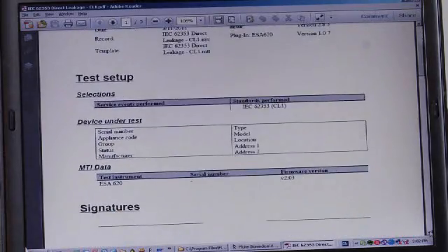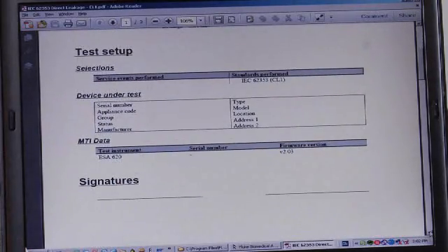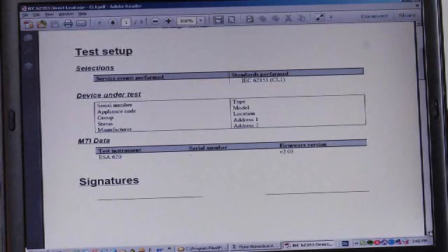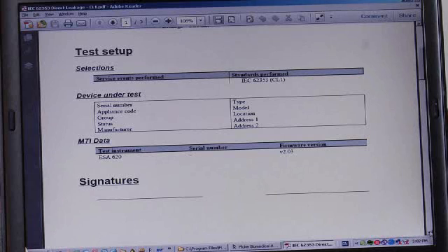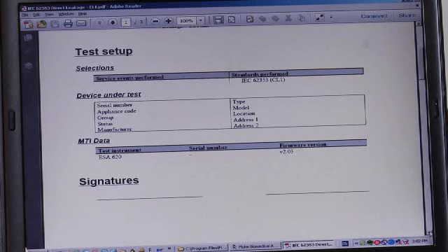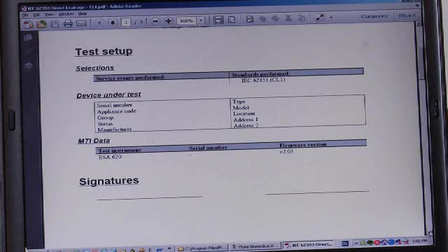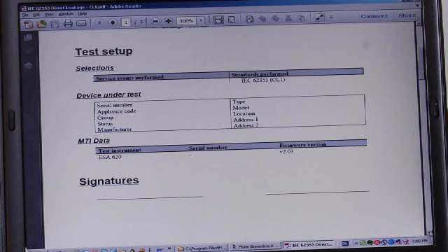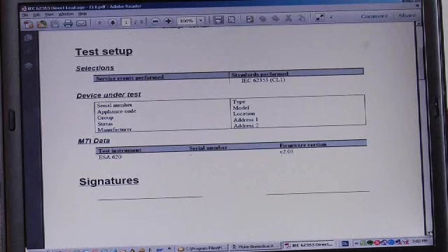As we scroll down, you can see the test setup, which includes which standard the test limits and the test methodologies came from, the device under test information, and the test instrument that was used. You can see that there's a place here for signatures. If we were to print this report layout in hard copy, we could sign it and we could have our client department or client facility sign it, indicating that they saw that the testing had been done.